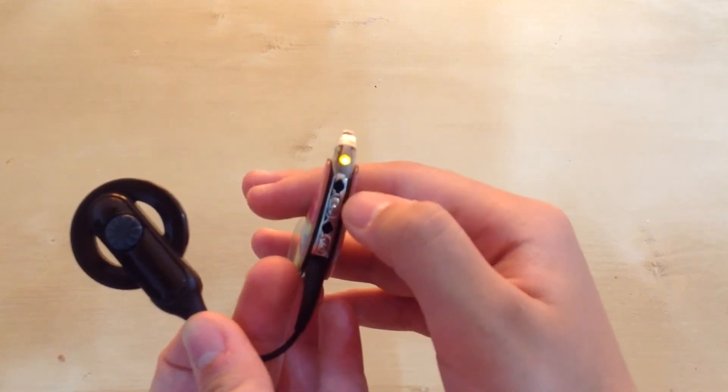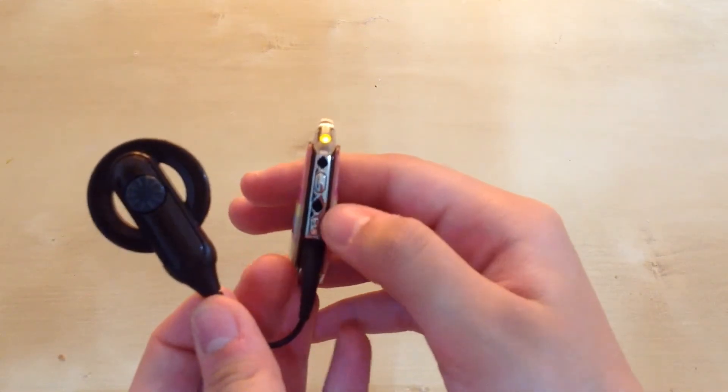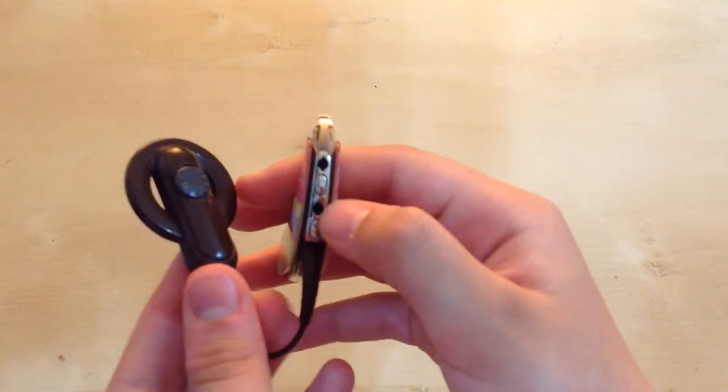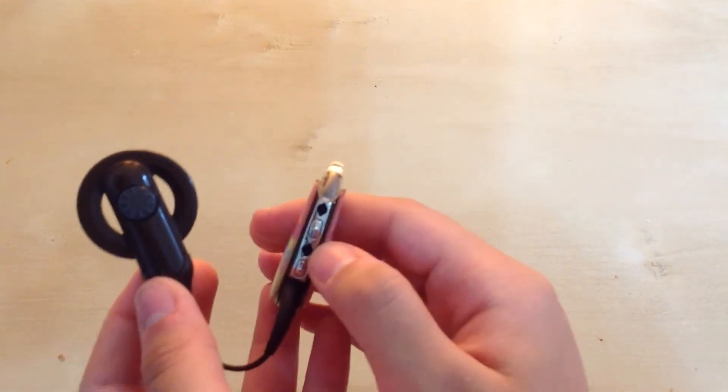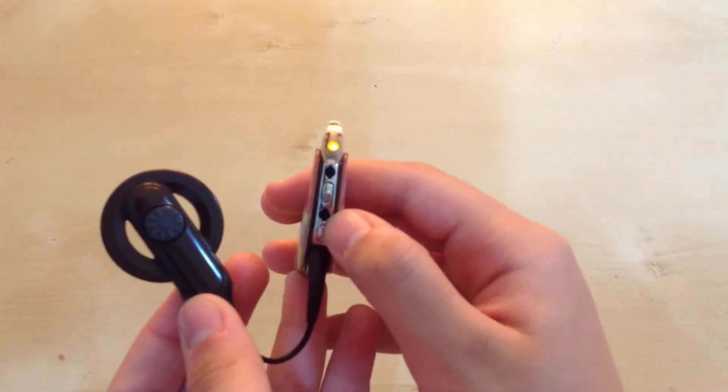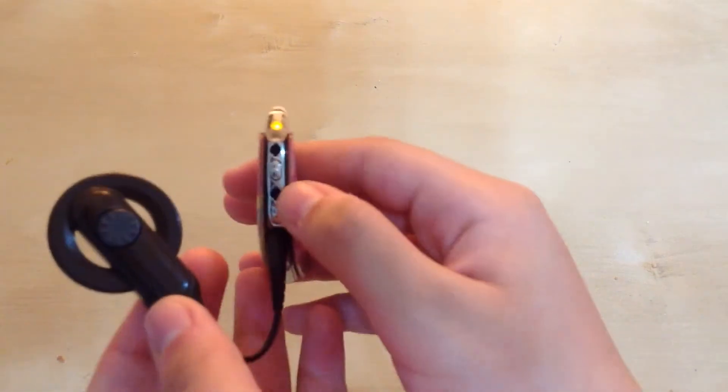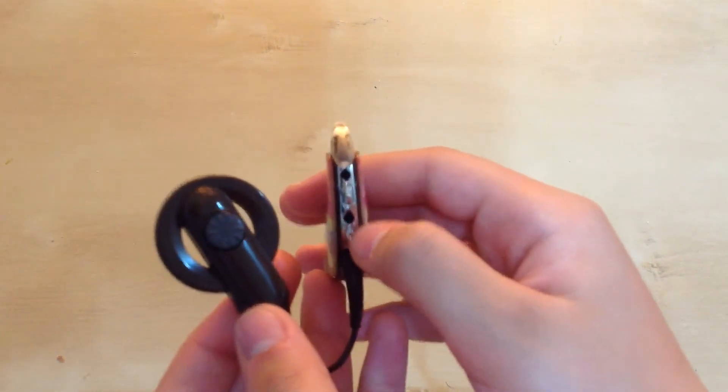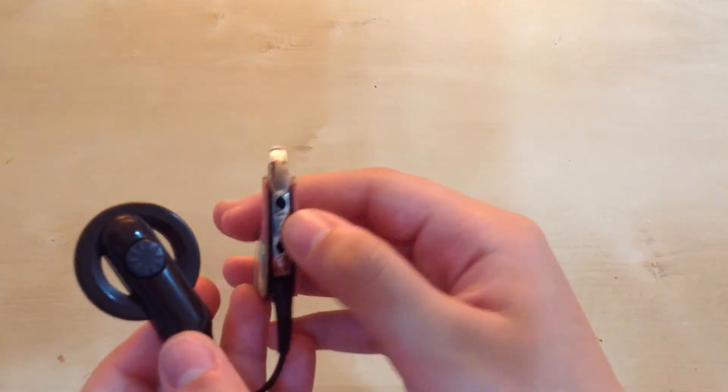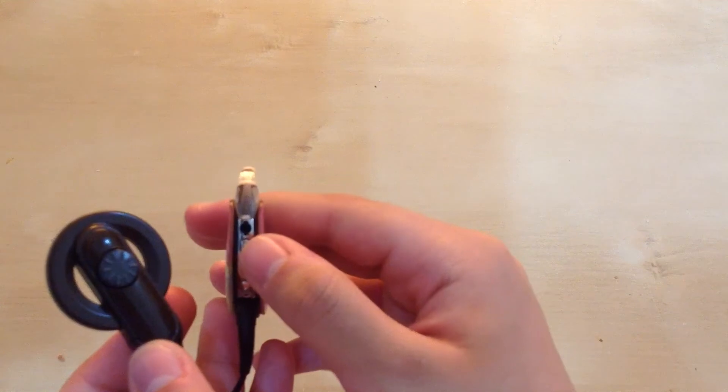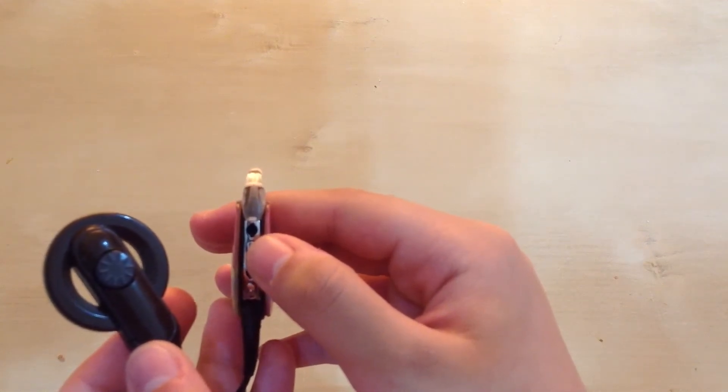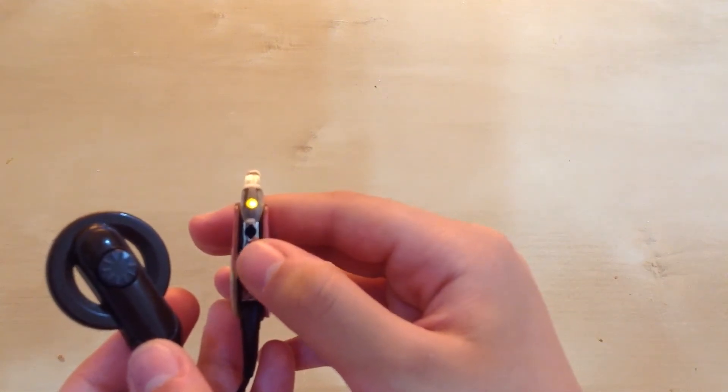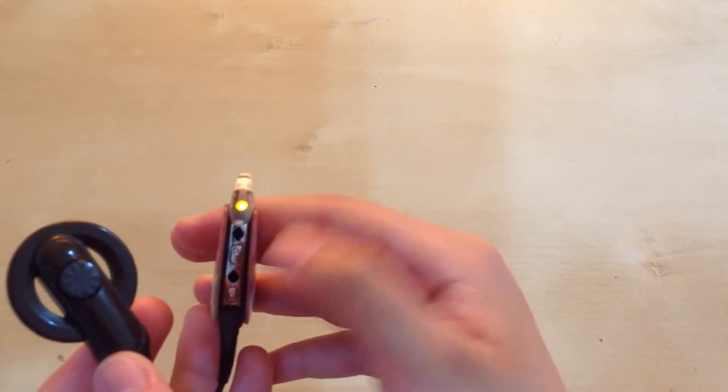The top button is to turn on T-coil, which you're supposed to turn on if you have sound links and you want to use them. You would click on the top button. I just clicked on the top button just now and that green light came on to let me know that T-coil is on.